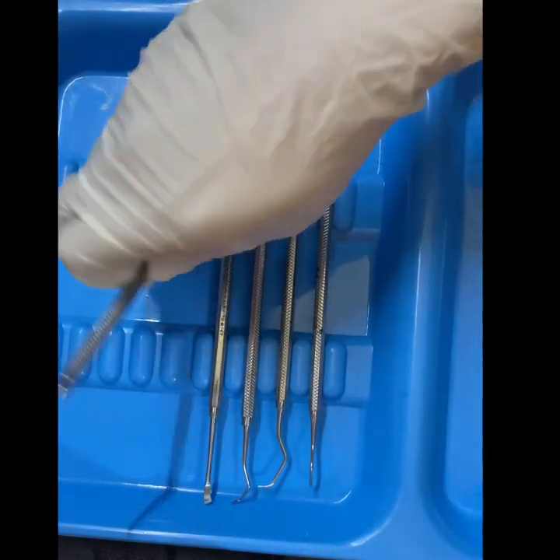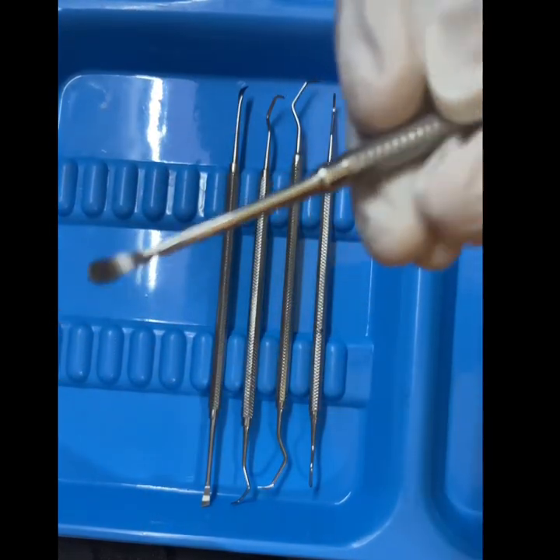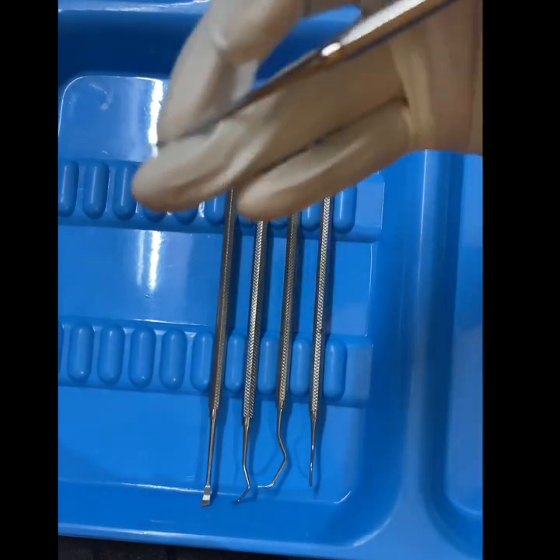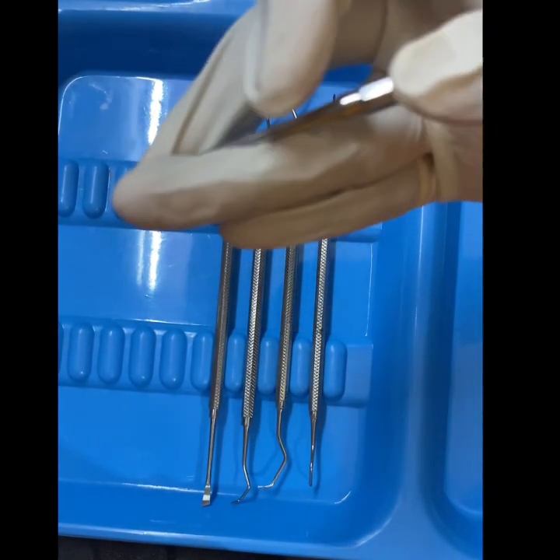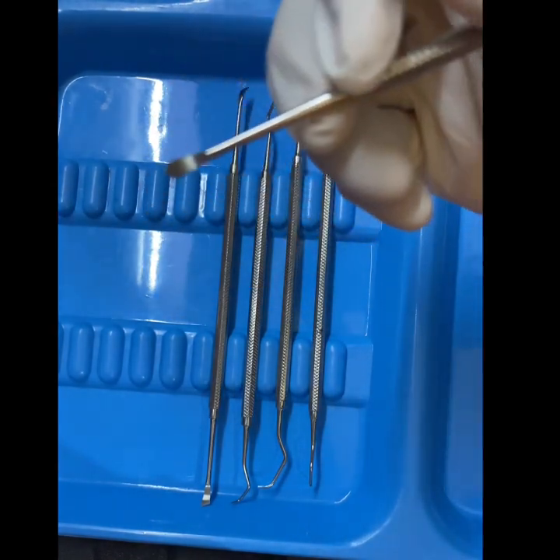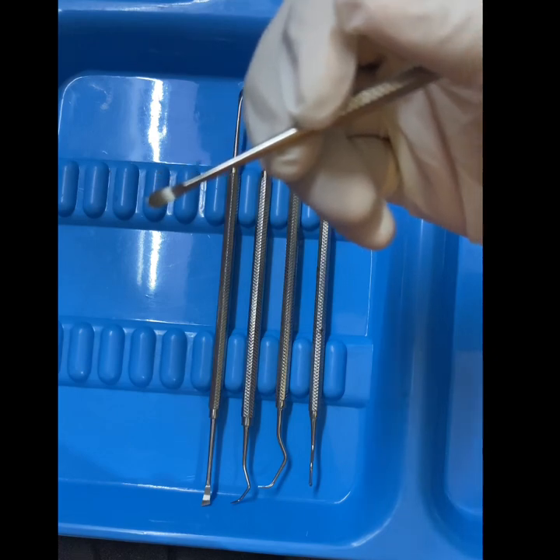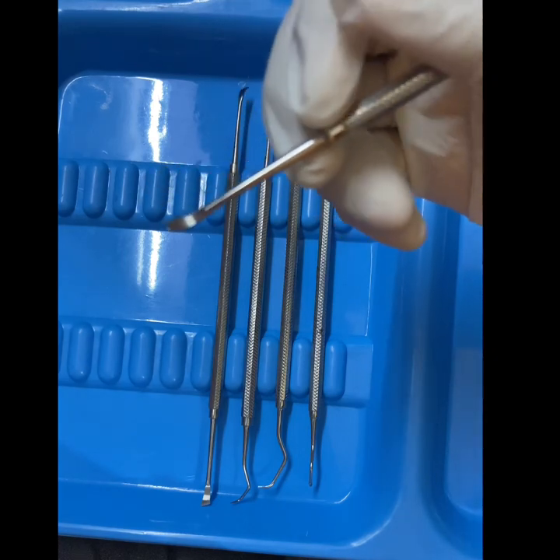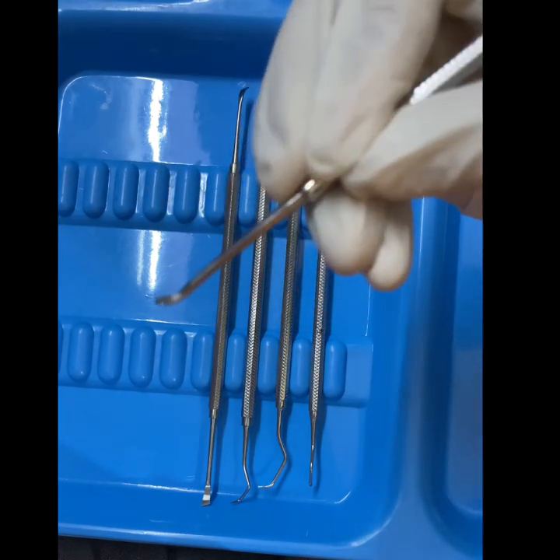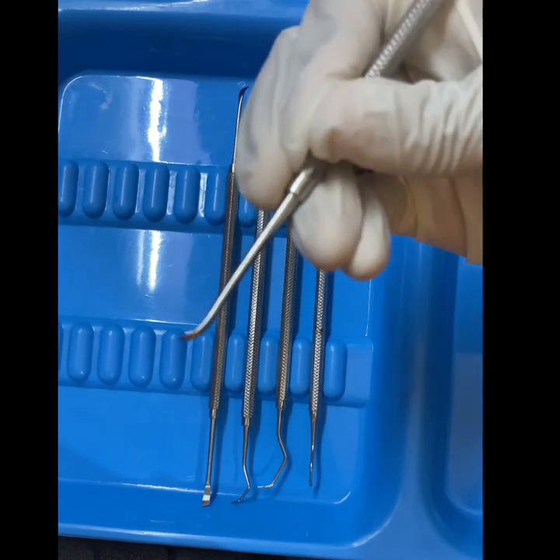Now this one is the chisel scaler. We mostly use it in the anterior area.